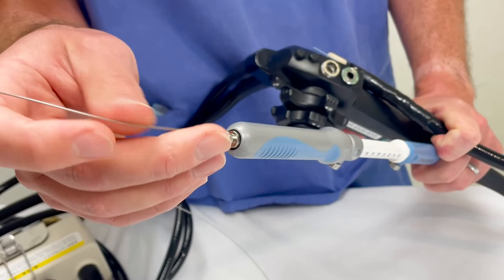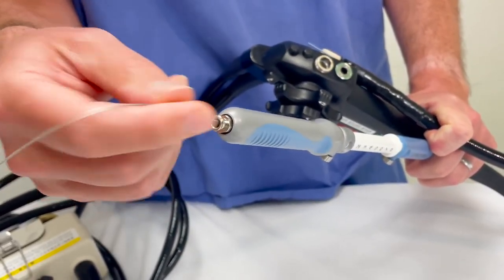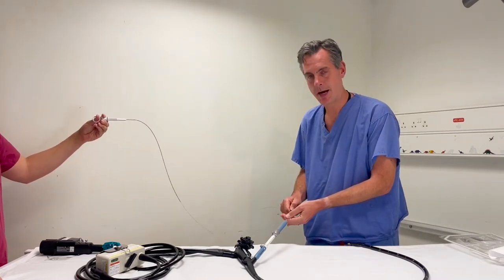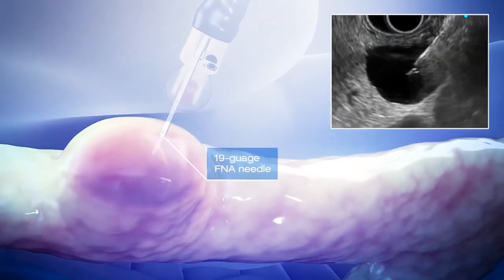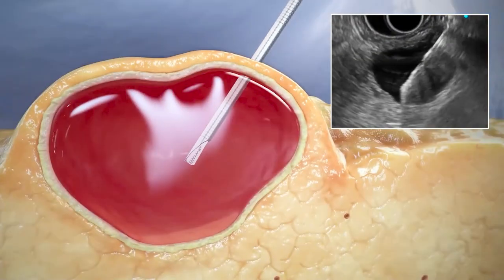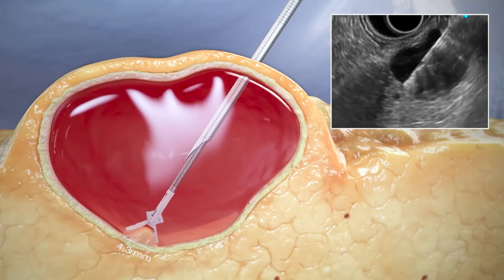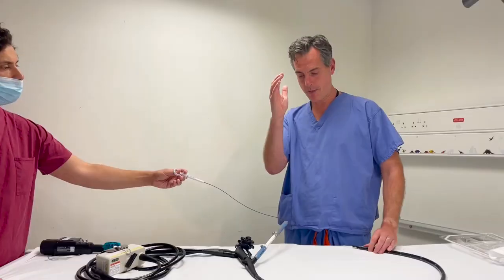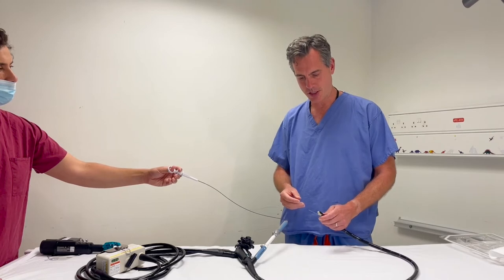The key feature of these is the jaw width — we're getting up to 4.3 millimetres of jaw width for better tissue acquisition. The idea being we have a better chance of capturing that little nodule in the cyst, a better chance of capturing a nice bit of the cyst wall lining. Is this serous? Is this mucinous? We want our pathologist to get lots of tissue.